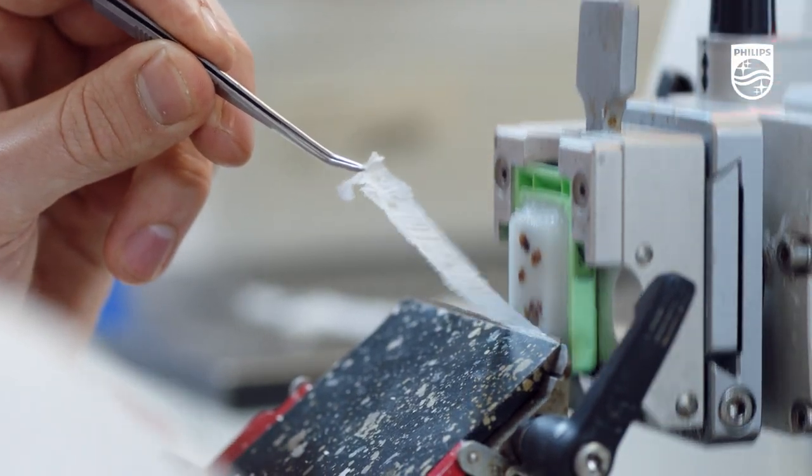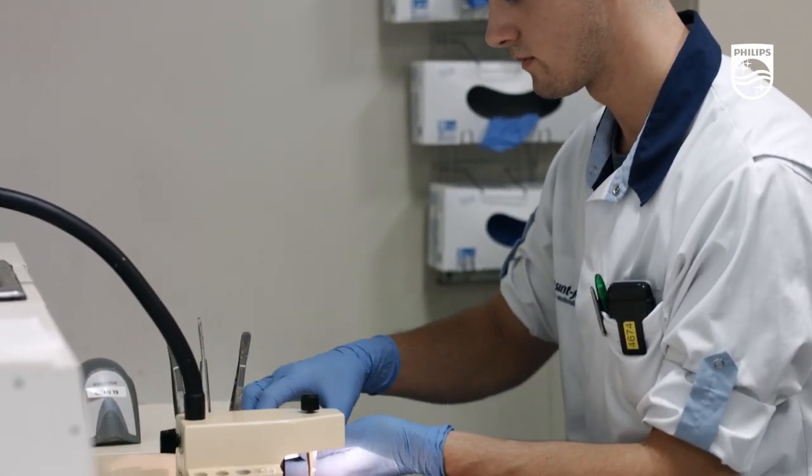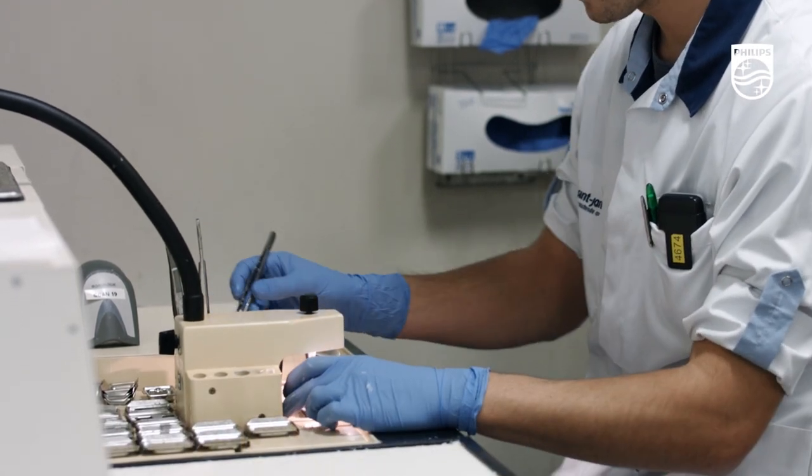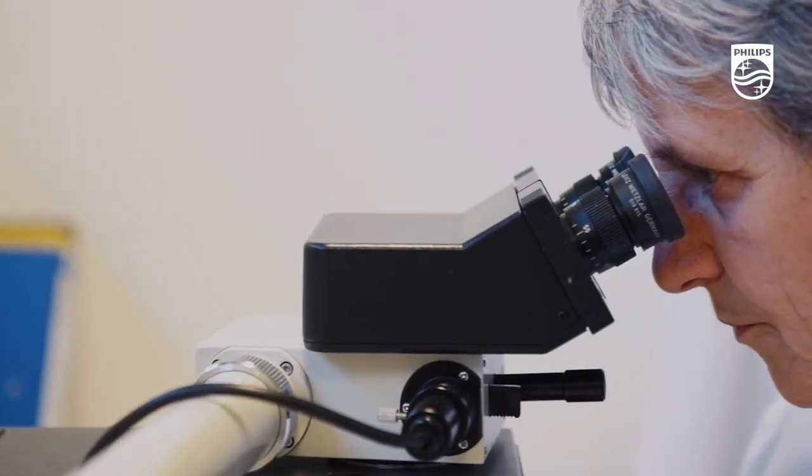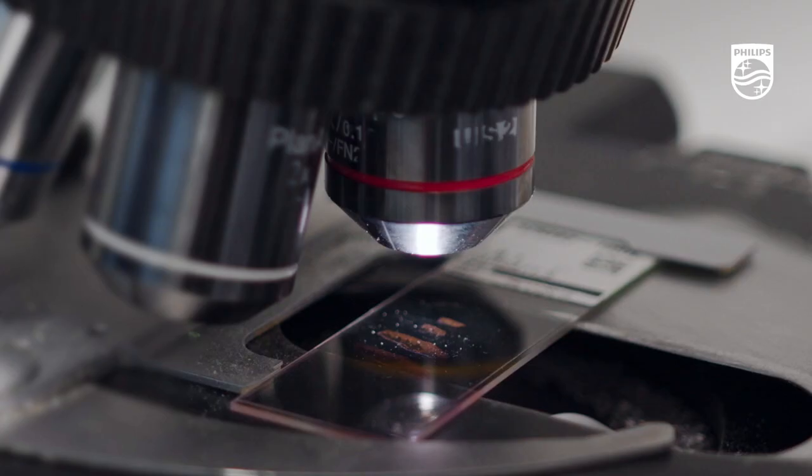With the increasing pace of change and demand for services, pathologists need to find new ways of working to future-proof the profession to deliver the best diagnosis, overcoming the inefficiencies of a traditional glass-based workflow.